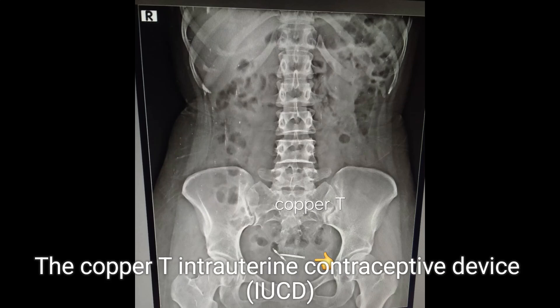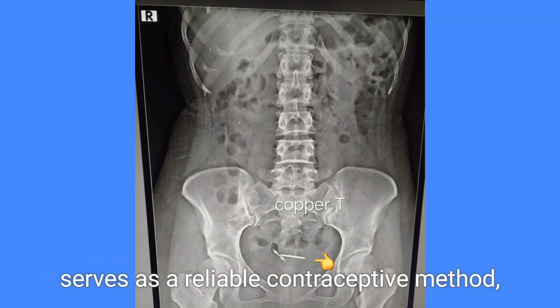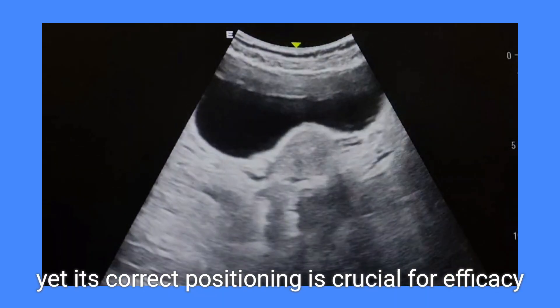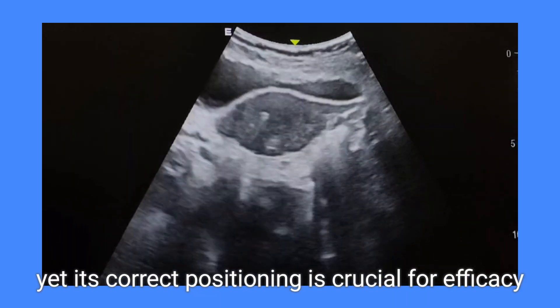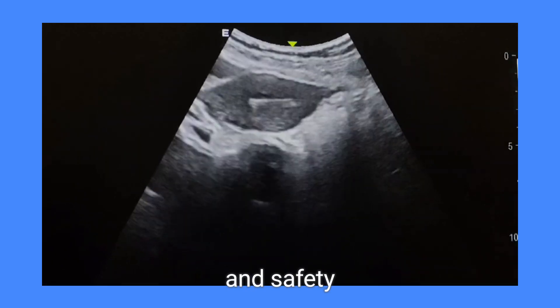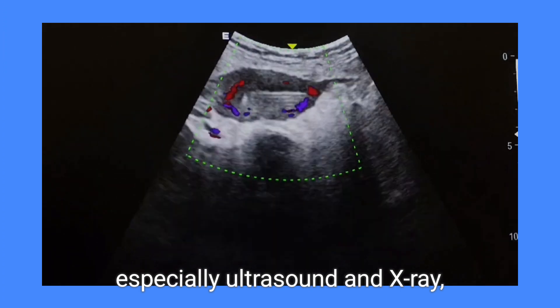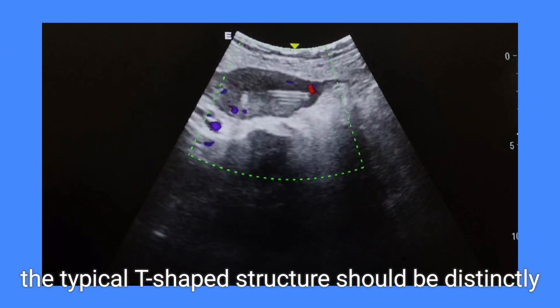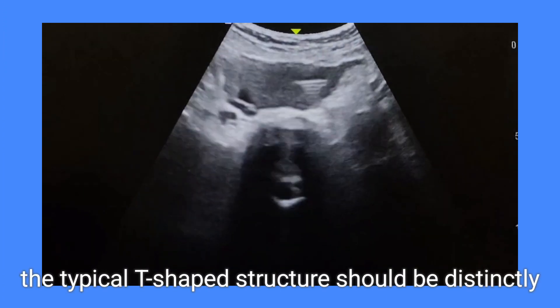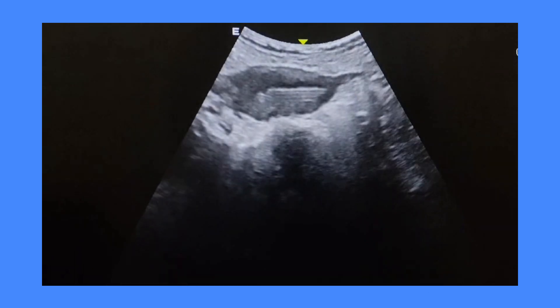The copper T intrauterine contraceptive device, IUCD, serves as a reliable contraceptive method, yet its correct positioning is crucial for efficacy and safety. On imaging studies, especially ultrasound and X-ray, the typical T-shaped structure should be distinctly visible within the uterine cavity.